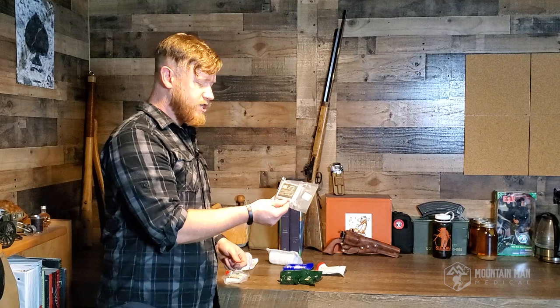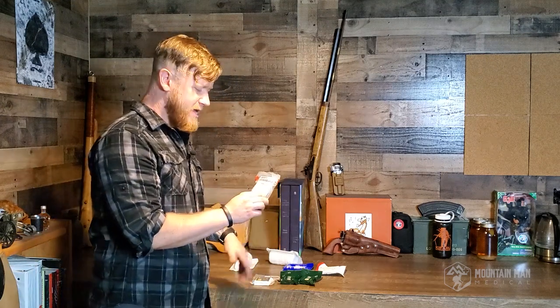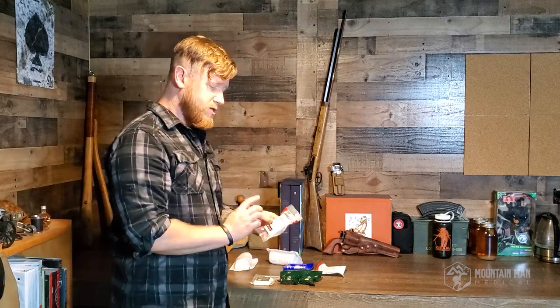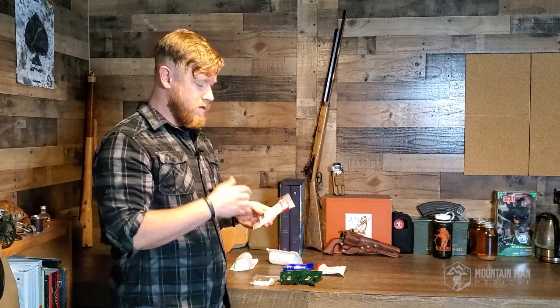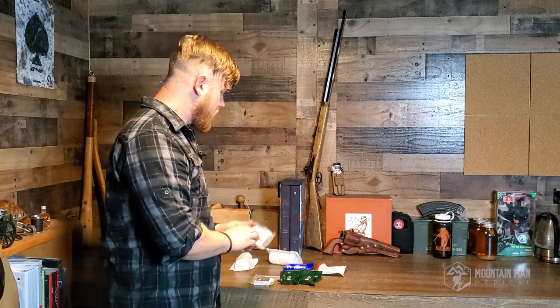We've got this from H&H Medical Supply, and this one is the exact same as the other two — this is from North American Rescue, packaged a little bit differently. I personally like the packaging on this. For my medical career, North American Rescue is used pretty widely in the military, so this is something that I usually tend to gravitate towards. But any of these are going to work for you.